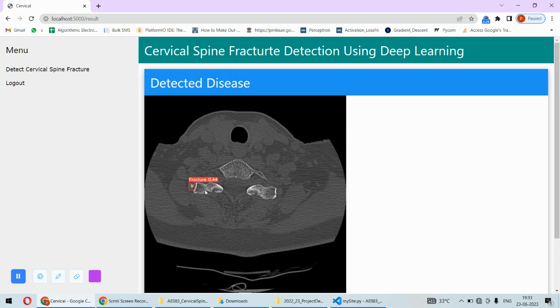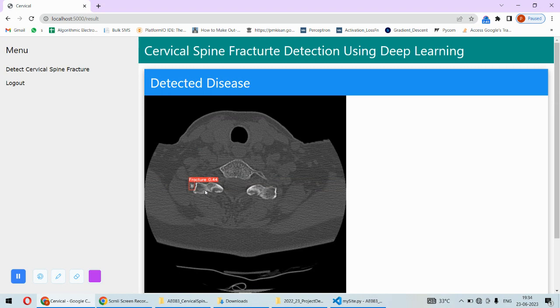That is the basic demonstration of this. This will be a helpful tool for doctors to diagnose the disease or to identify the fracture regions automatically using deep learning. This will be a more precise identification of the fracture regions by looking into the MRI or scans on the spinal images.